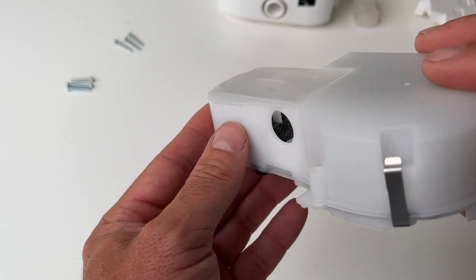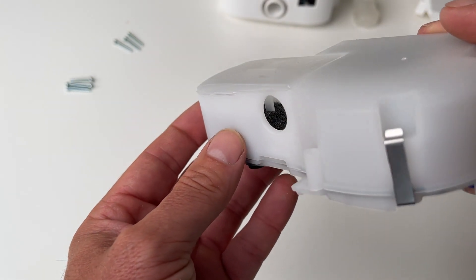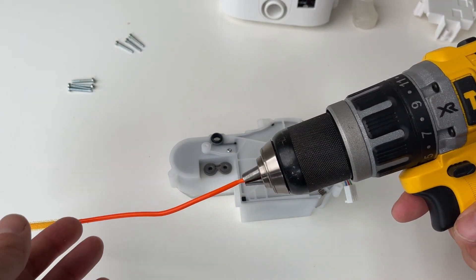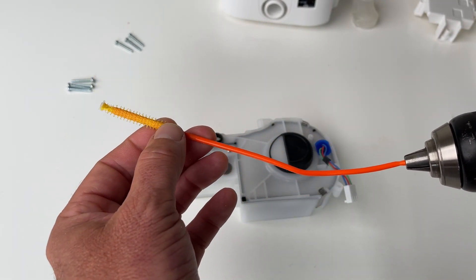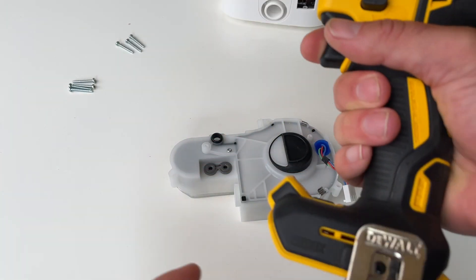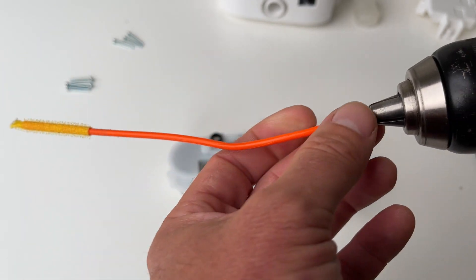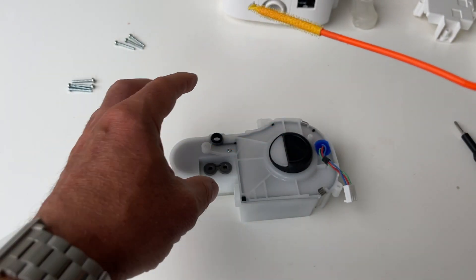To access the foam I'm going to use the drain weasel method. You could probably just get some tweezers and pull it out, but I'll show you the way I do it. So you've just got a drill here on the low speed setting, and this here is what's called a drain weasel — it's got little tiny hooks on the end so you can thread it in. I'm going to need a battery — hang on, I'll just grab it. This is the one I use for the standard Dream Station and the chamber's a lot longer.